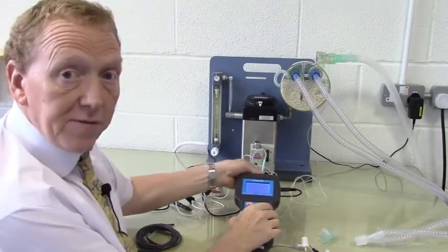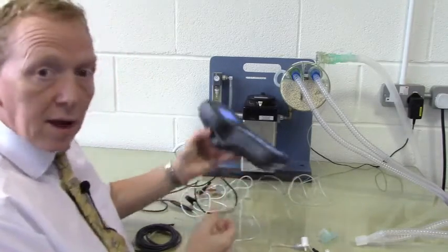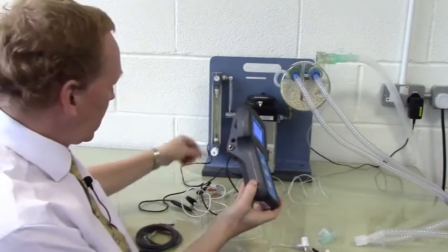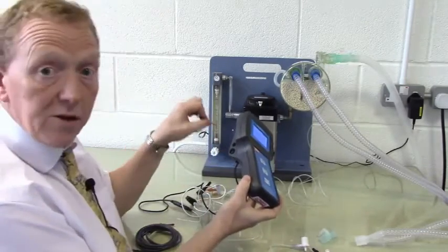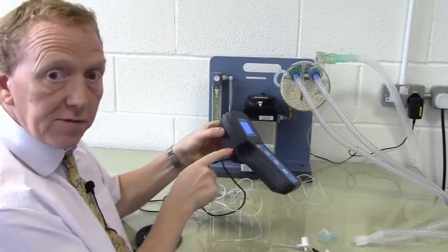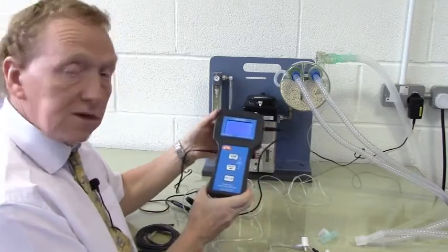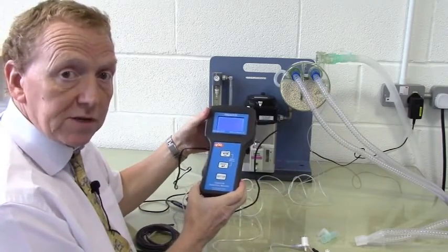And that describes the main features of the Impact 3. It's a handheld battery unit and may be charged and used at the same time when plugged in and charging. The red light flashes. When the red light stops flashing, the unit is charged. A standard charge will run this unit for about 5 to 6 hours. And that concludes the setup and demonstration of the Impact 3.